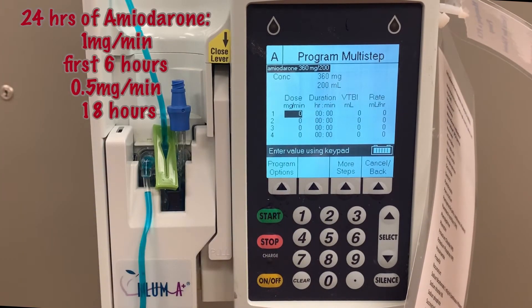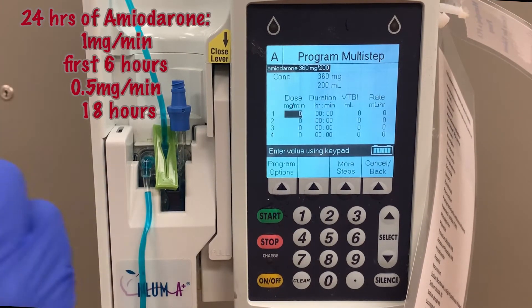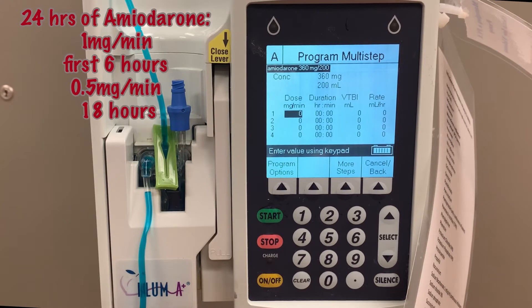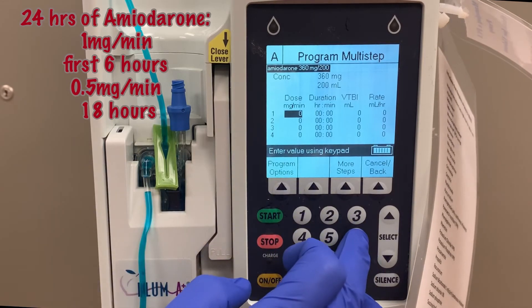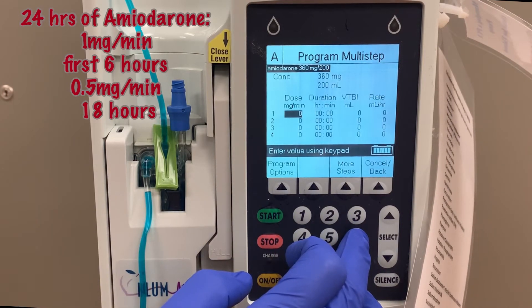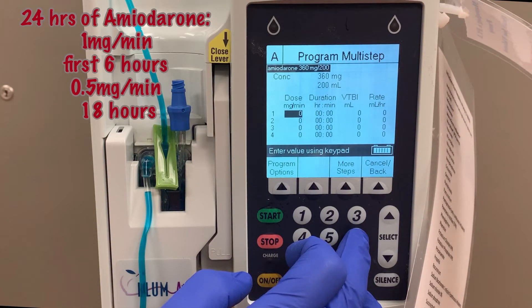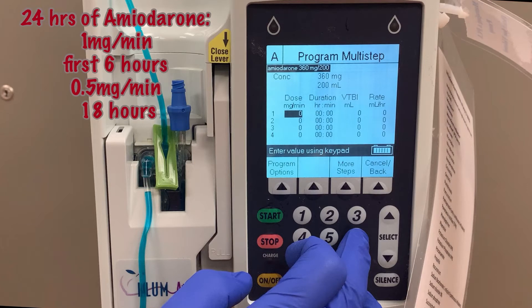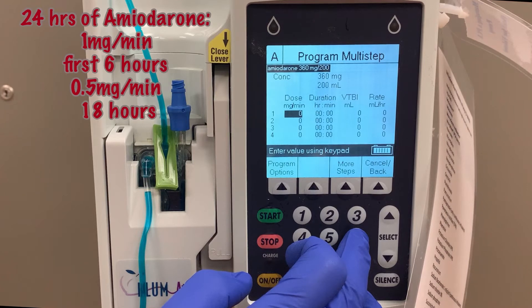Amiodarone is a medication that runs at one milligram per minute for the first six hours and then 0.5 milligrams per minute for the next 18. We could use loading dose to program amiodarone, but we're using multi-step just to show the broader scope of programming possibilities.